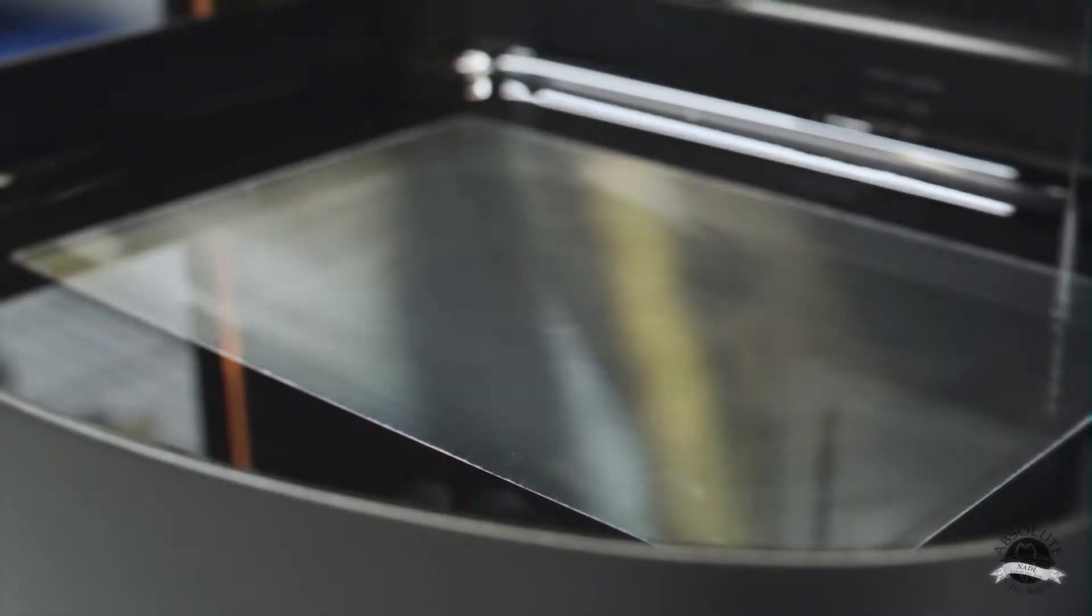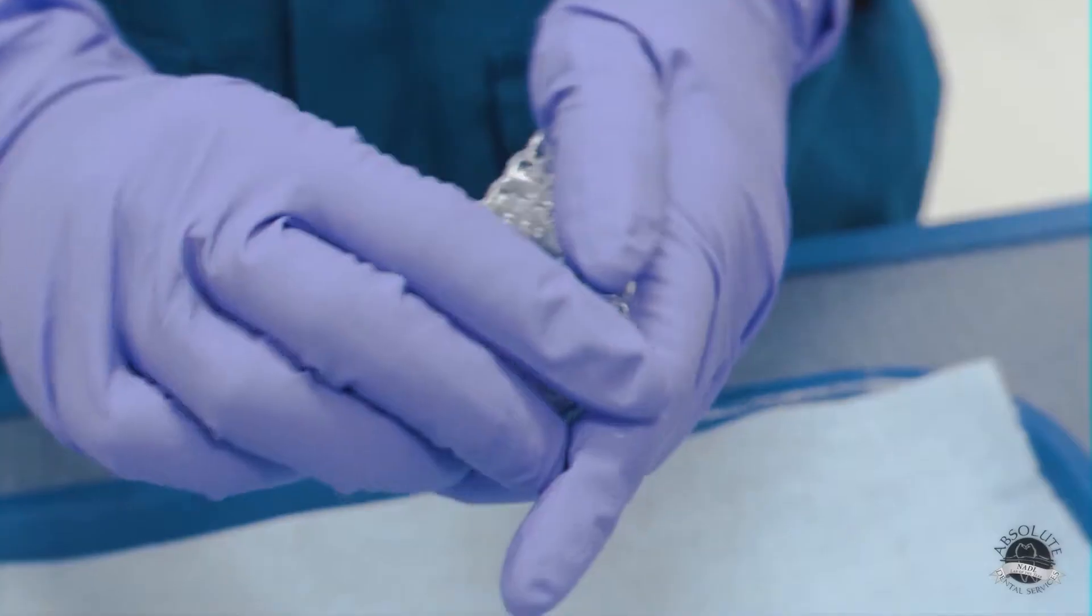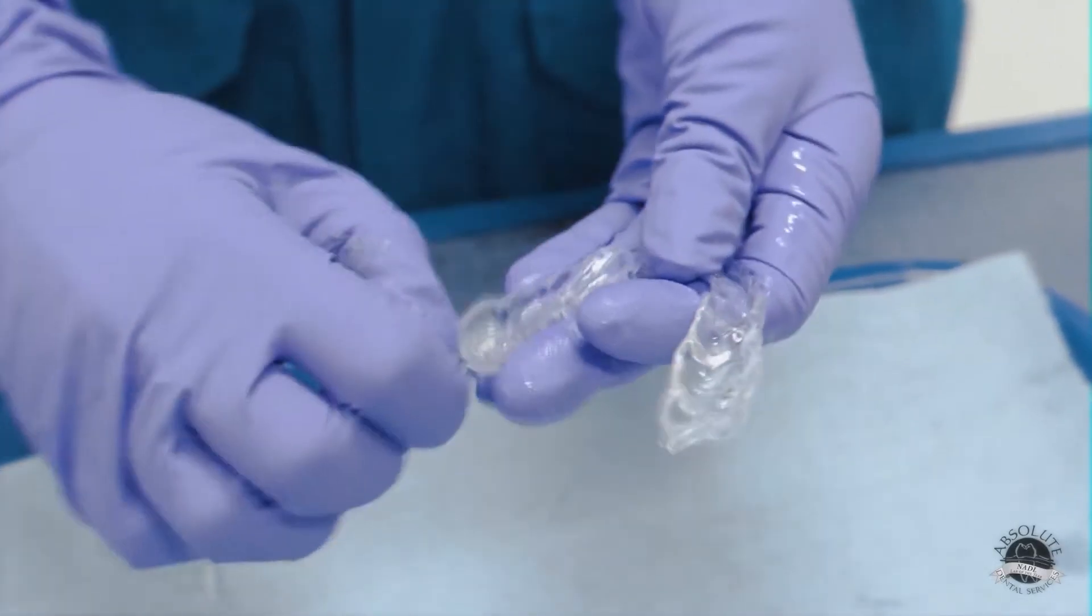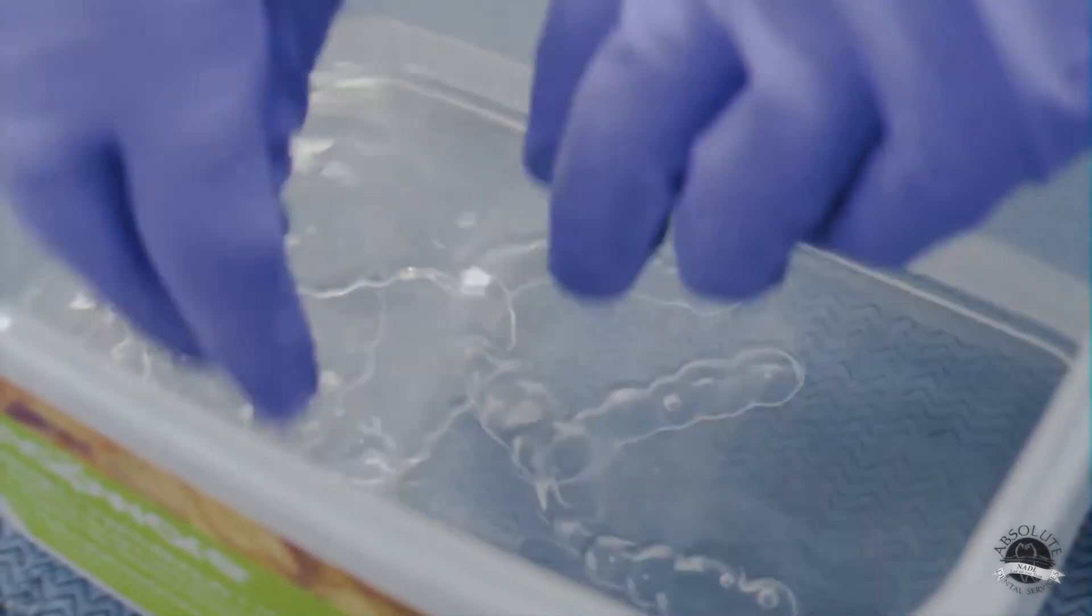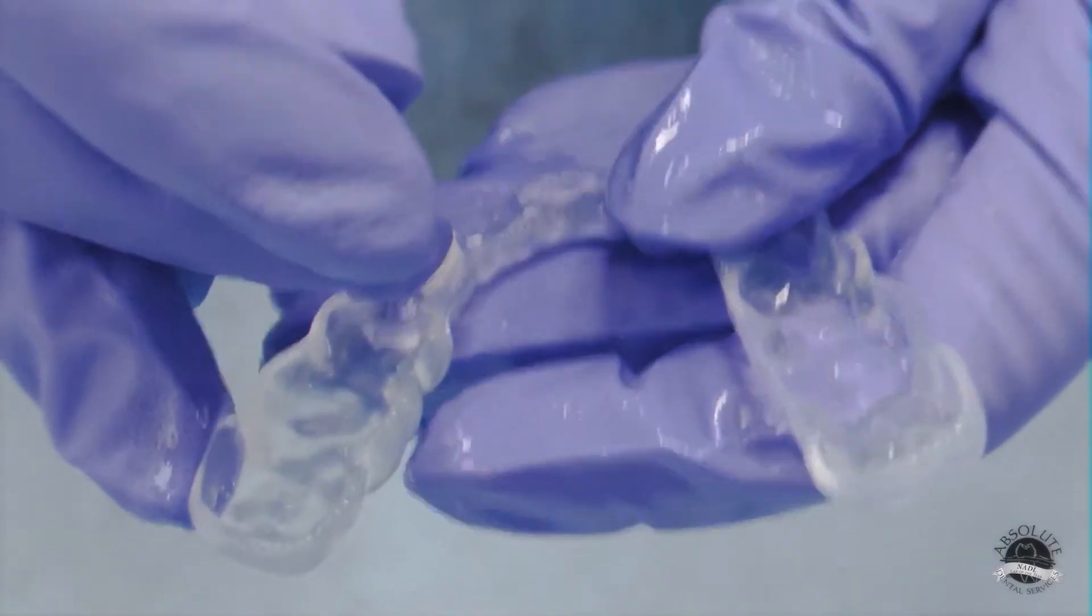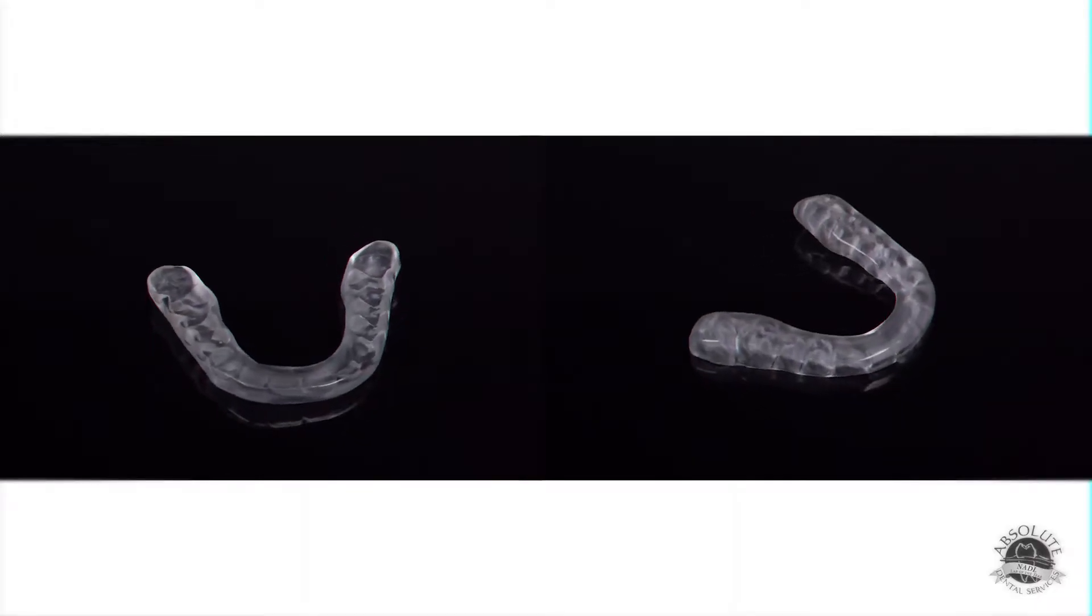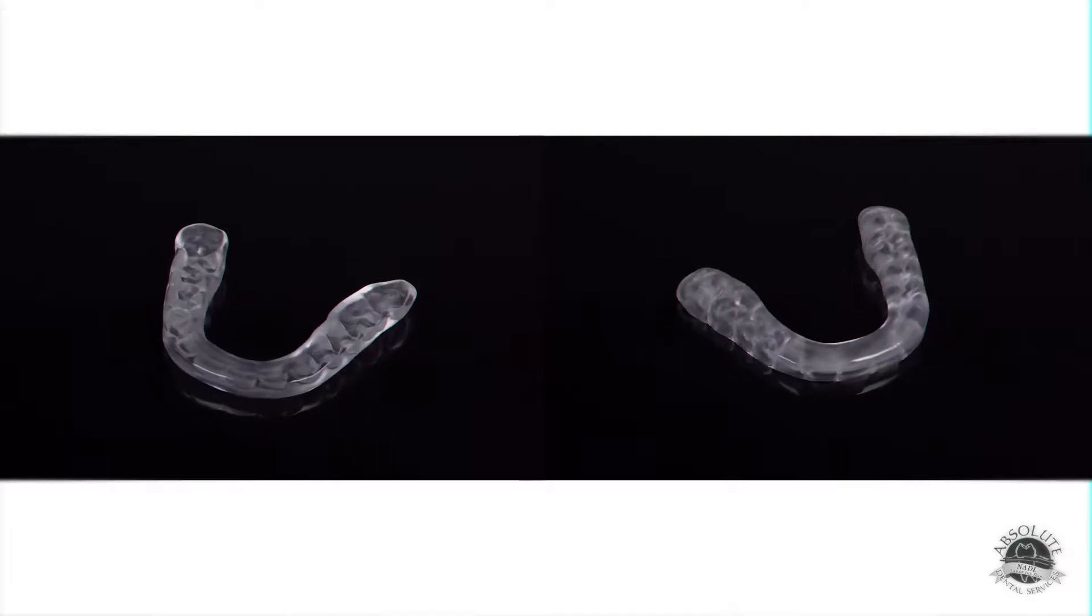That's right Jack. I think no way is this effect of technology more noticeable than in the removable arena. Today we'll discuss night guards and how digital design in combination with a very innovative 3D printable material from Keystone is influencing this product in a very positive way.